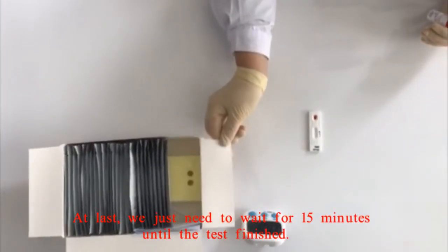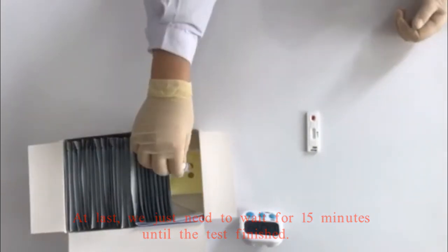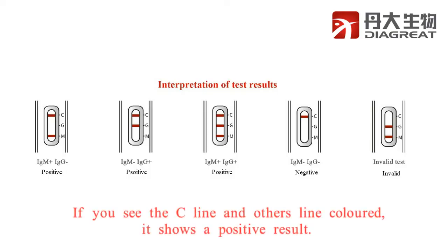At last, we just need to wait for 15 minutes until the test is finished. If you see the C line and other line colored, it shows a positive result.